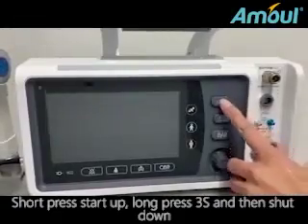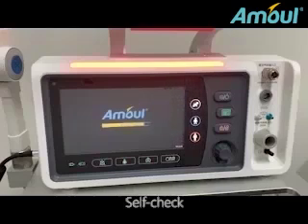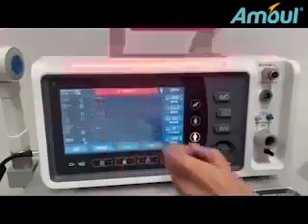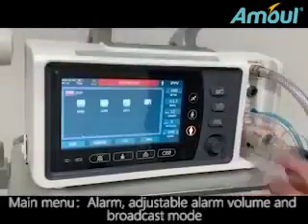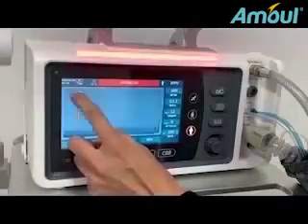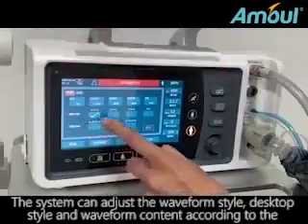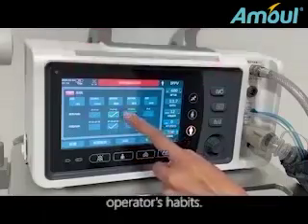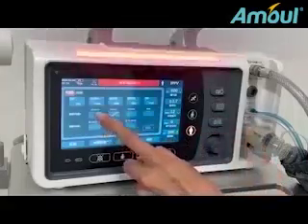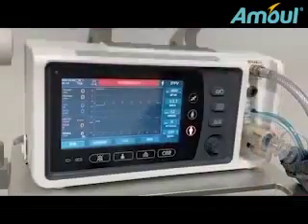Short press to start up. Long press for 3 seconds and then shut down. Self-check. Main menu. Alarm: adjustable alarm volume and broadcast mode. The system can adjust the waveform style, desktop style, and waveform content according to the operator's habits. Different waveform combinations can be selected to be displayed on the current desktop.